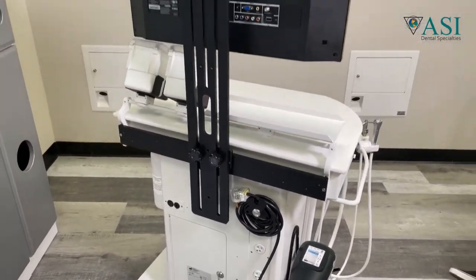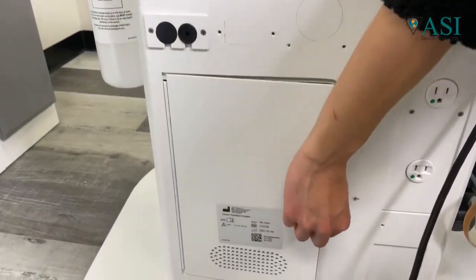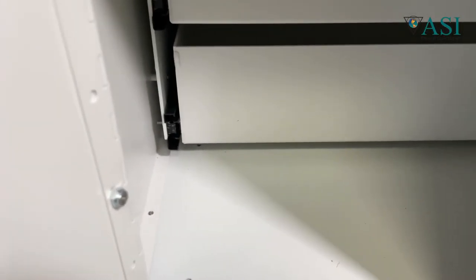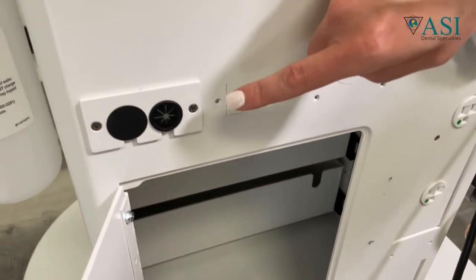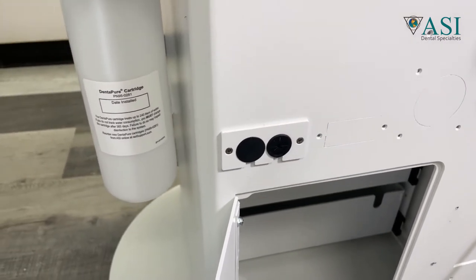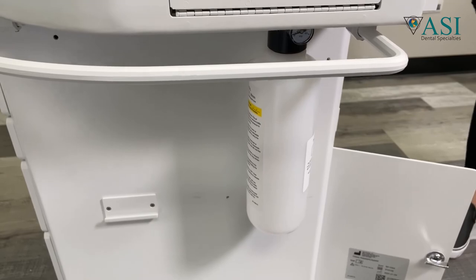You can equip the unit with an optional monitor mount. Inside the back, there's a small bay for CPUs that can hold a mini tower, and there's also an accessory outlet. Here's access where you can run your monitor cables or keyboard cable to connect to your computer. To complete the unit, it also comes with a closed water system located on the side.